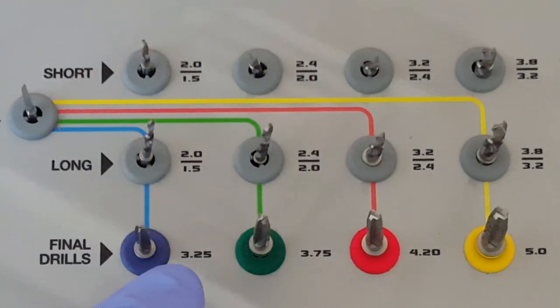The 3.25 millimeter diameter, or narrow platform implant, has a blue color. The color green corresponds to the 3.75 millimeter implant, which is a standard platform implant.